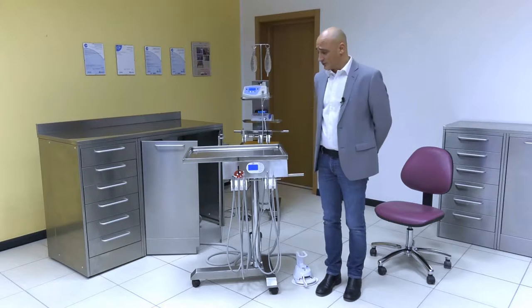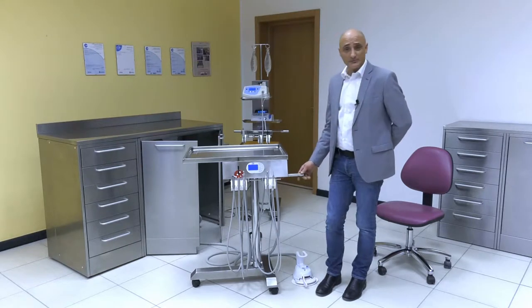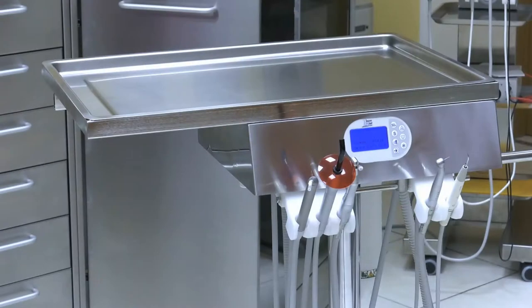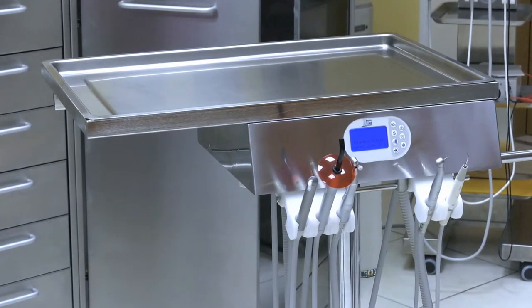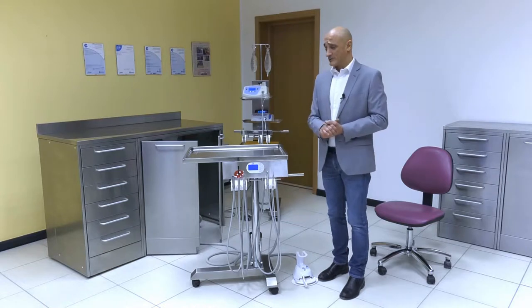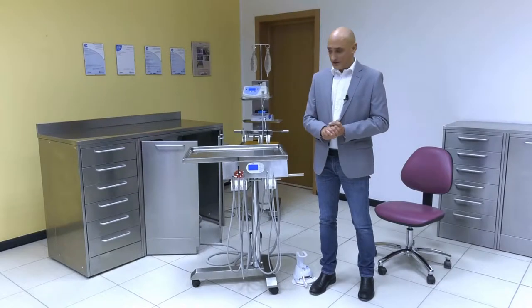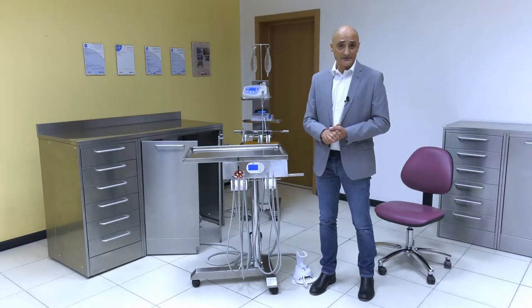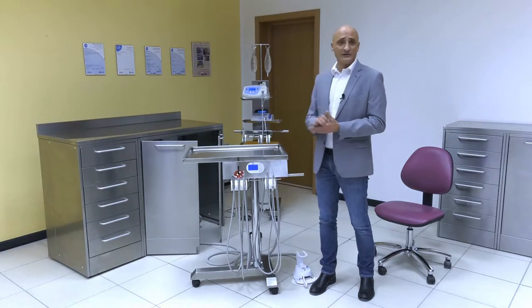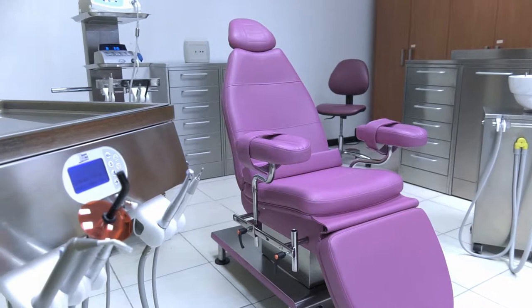As you can see, Maykart is a dental instrument cart, completely made of steel and fitted with wheels. Maykart can be raised or lowered using a hydraulic pump and provides a large Mayo tray to easily rest your tools. Our cart was entirely developed using stainless steel, which is the first choice material in terms of hygiene and easy cleaning. It stands out from all other carts used or marketed so far, which are entirely made of plastic. Plastic is a very fragile material, which has a tendency of turning yellowish and features nooks that are very hard to reach. The perfectly smooth and linear shape of Maykart makes it very easy to clean.